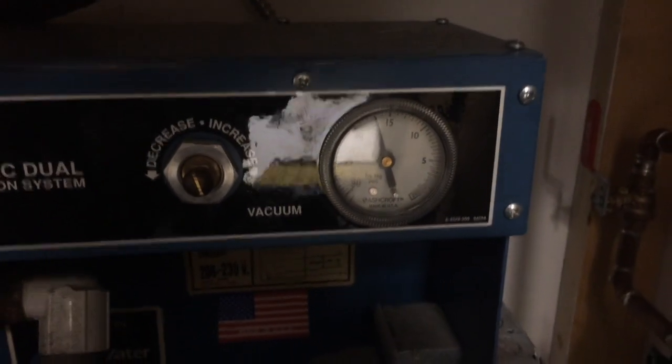Just recording the quality of work here — without even undoing anything, I could literally pull this right out. You'll notice we're looking at 17-18 inches of mercury, so we've gained about two or three inches of mercury.